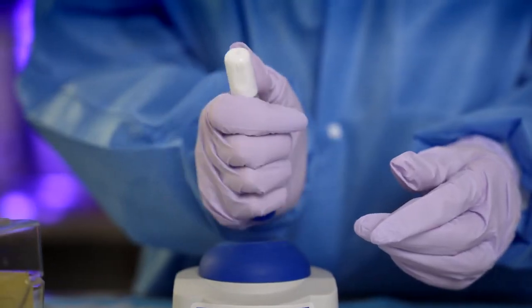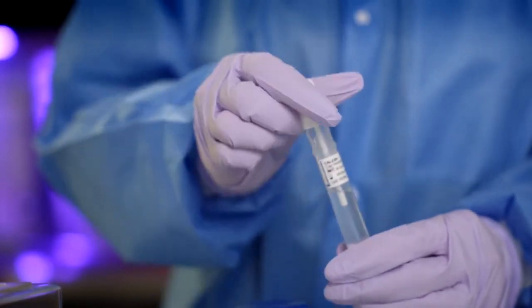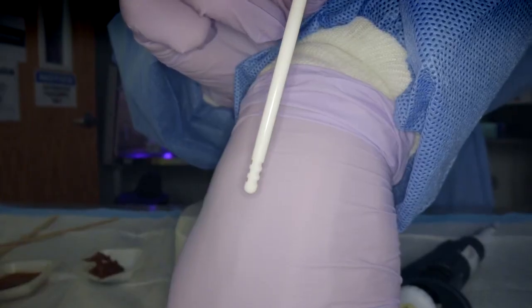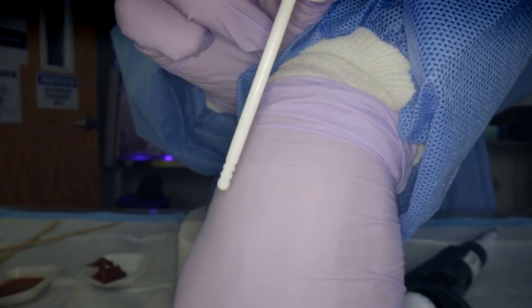Personally, I find it easiest to just hold it and push up with your thumb. Now that the white grip is out of the body, I can show you the grooves on the bottom and each side of the dosing tip. These grooves are meant to be completely filled with stool when you perform the preparation.